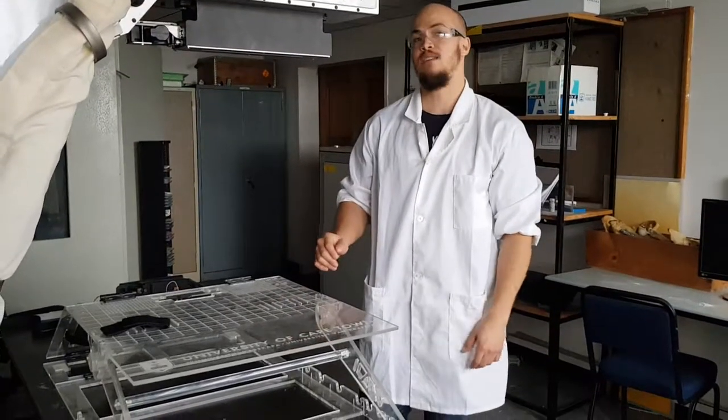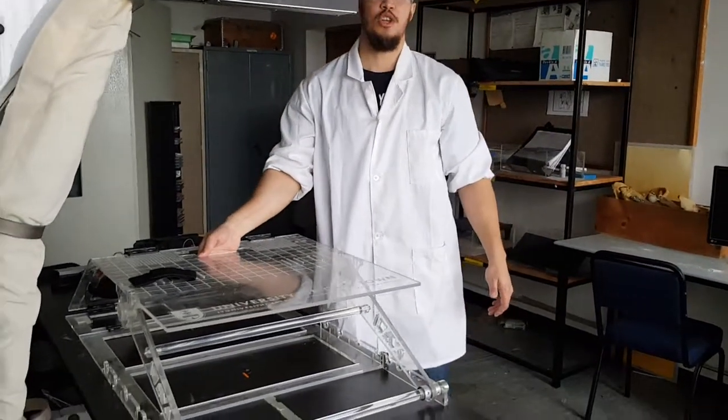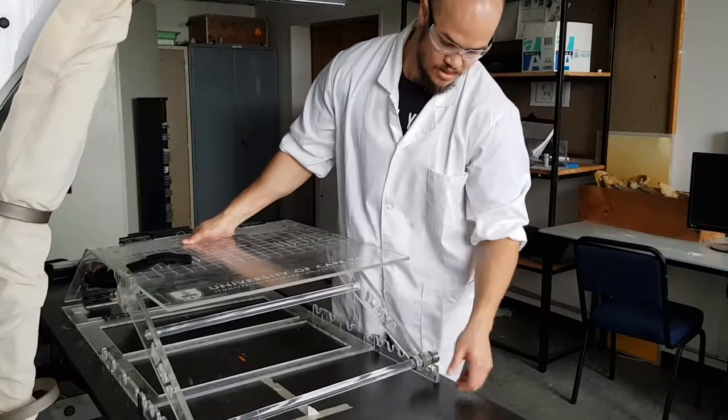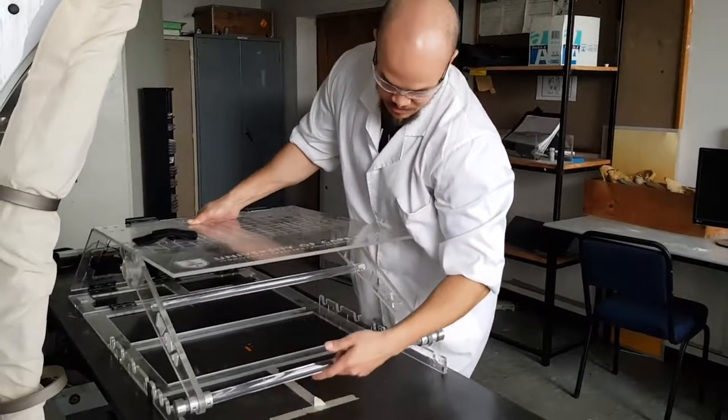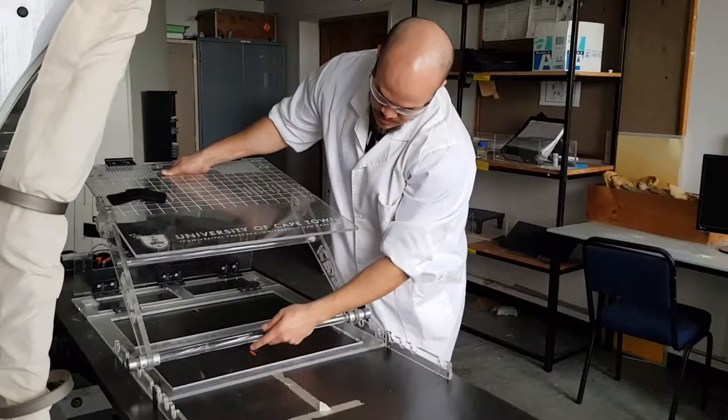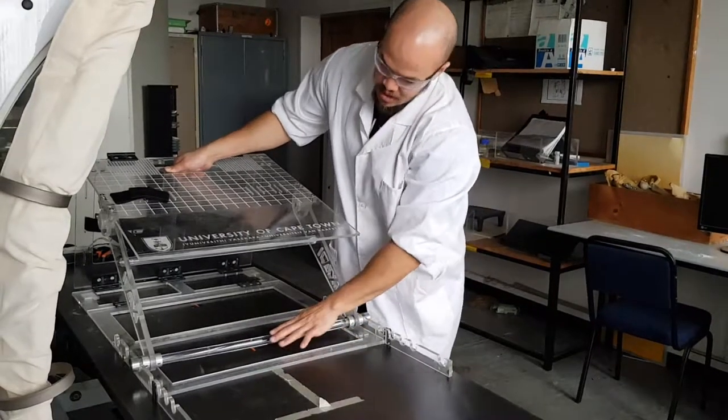From there, if you want to change your angle of knee flexion, hold your lower leg support panel, undo the rods from the supports or from the slots, shift it in place, lock it down.